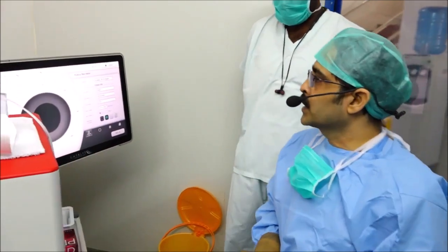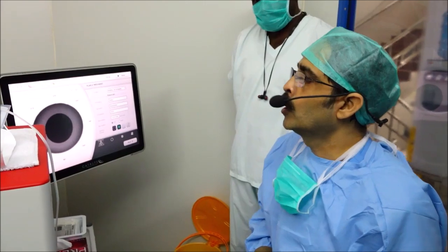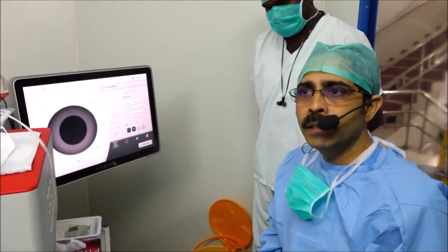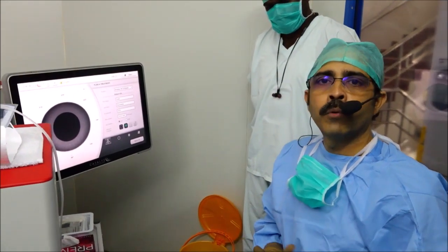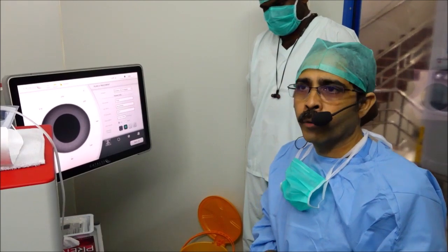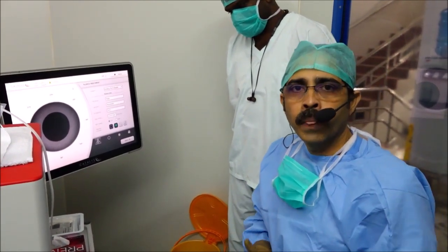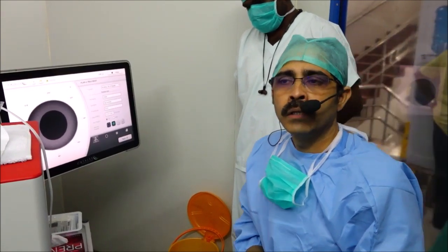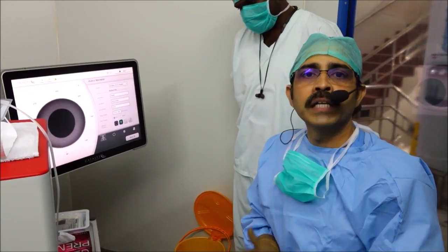I will just explain a little bit about the machine and the technology. As you all know, we have been using lasers quite some time in ophthalmology. This femto-assisted laser is the most advanced one. We have been using the Nd:YAG laser for our capsulotomies. We all know that it acts by photodisruption. This femto-assisted laser cataract surgery has a pulse duration of around 10 to the power of minus 15 seconds.